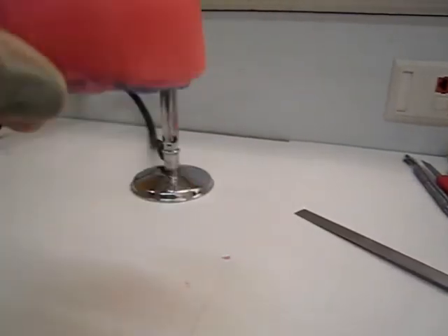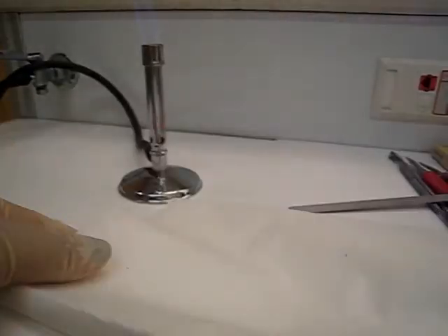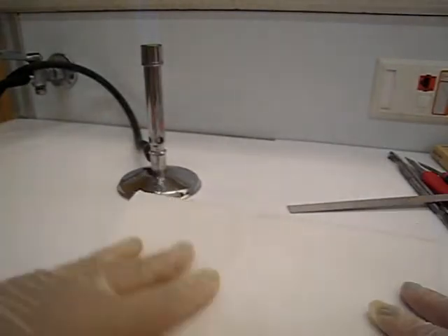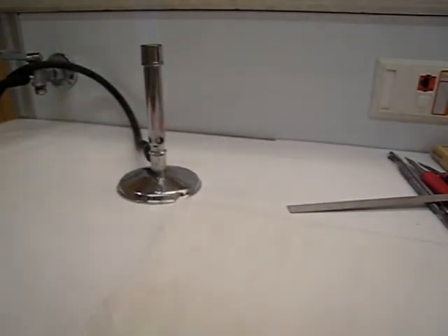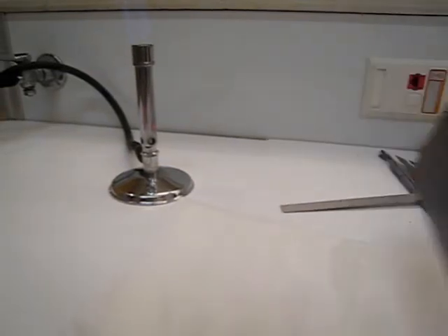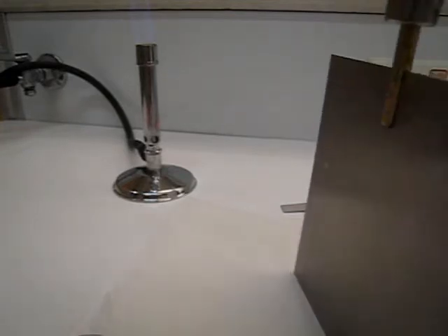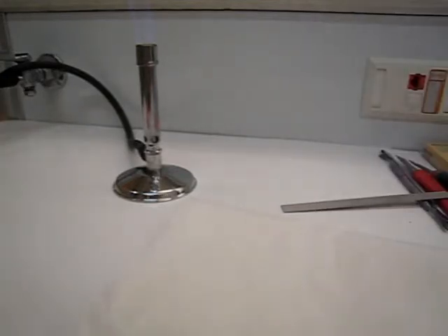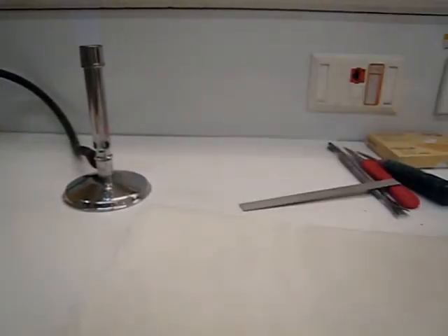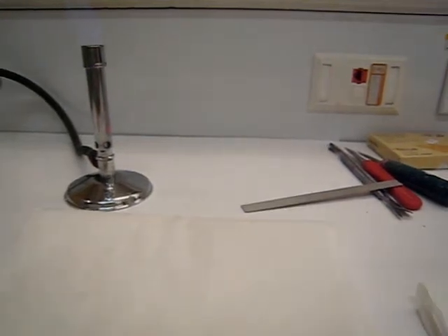Let's start by taking some wax off. First, take a nice long piece of paper towel, fold it up, and put it down on your working space. Because when you start melting stuff, melt it into the paper towel so it's not going to run all over your desk and onto your clothes - the paper towel will soak that up. Also have some paper towel on the side to clean your instruments as you go so you won't have extra wax sticking to things.